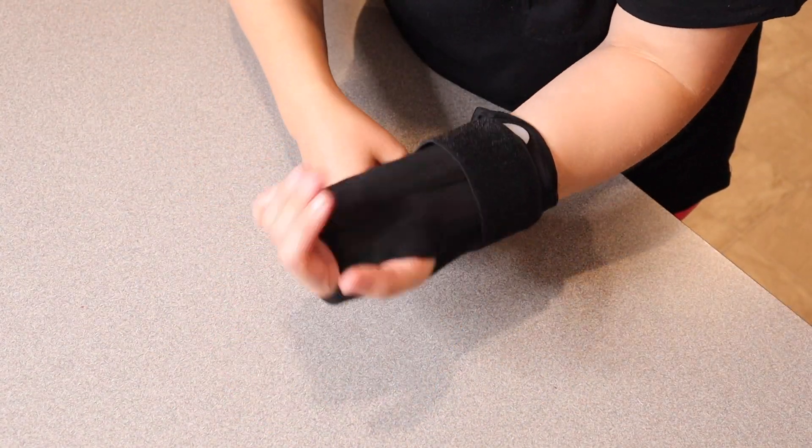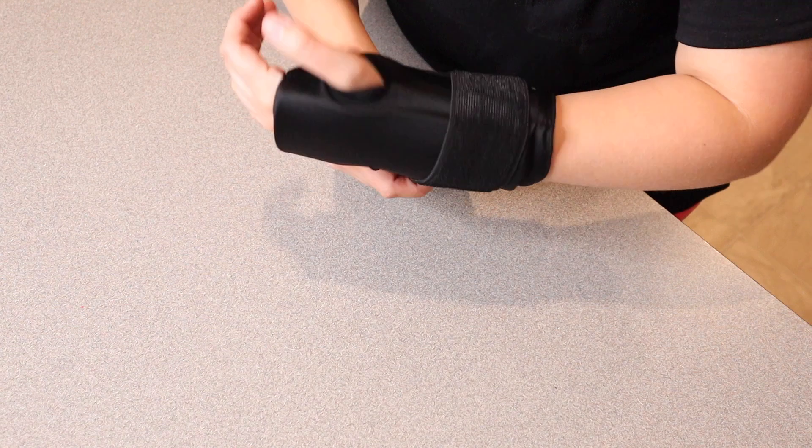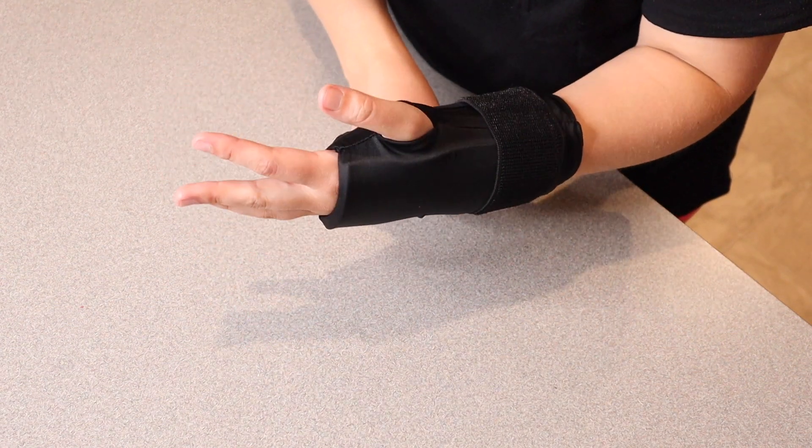And then you just strap this around your wrist to keep it nice and sturdy so that you don't actually have to hold an ice pack on your wrist.